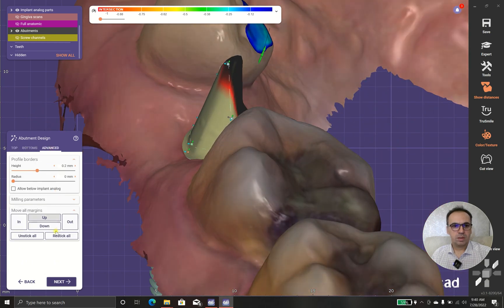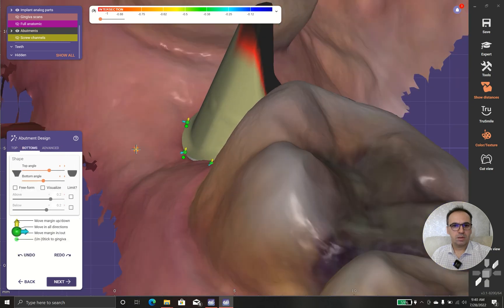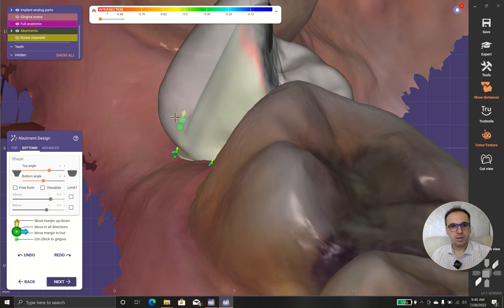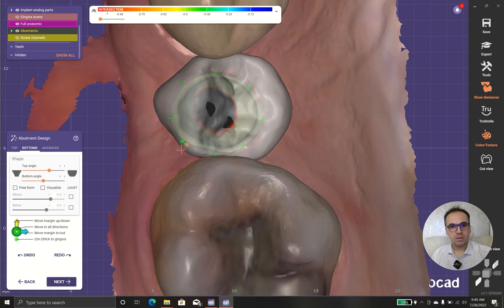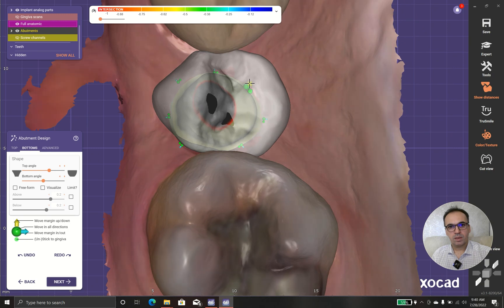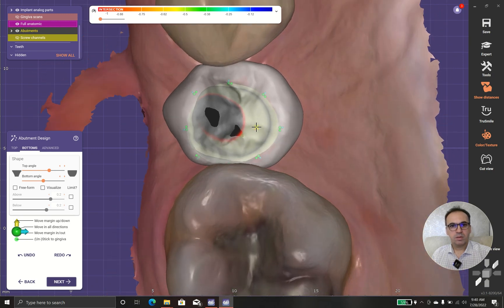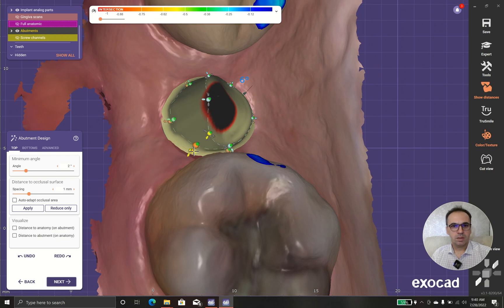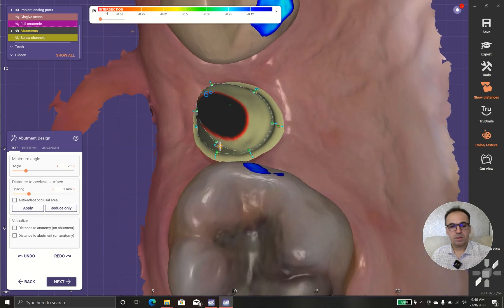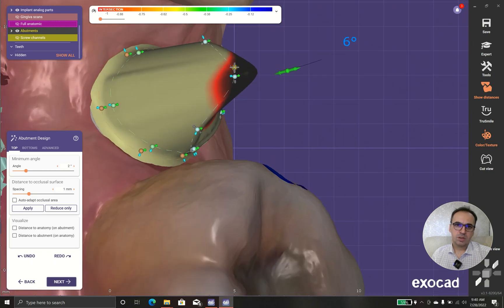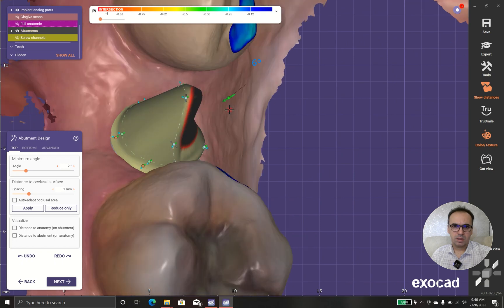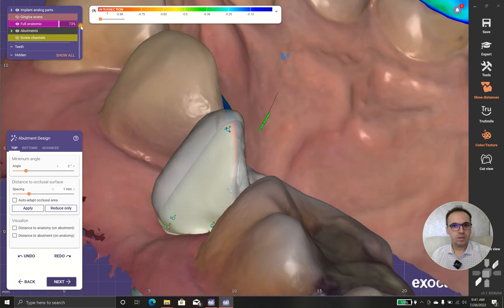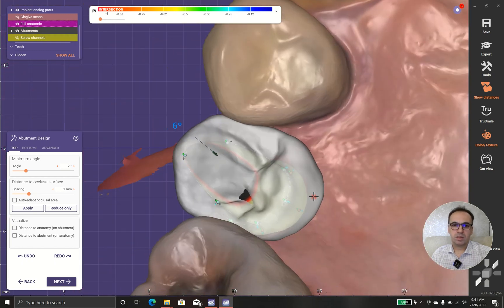I'm going to unstick all of the bottom parts. Because my full anatomy has started here, I rather prefer to extend my buccal and lingual side so I get more space for design. There is a shortage of space over there. Sharp angles like this do not get milled properly, so I prefer to have more space and will smooth it in a later step.